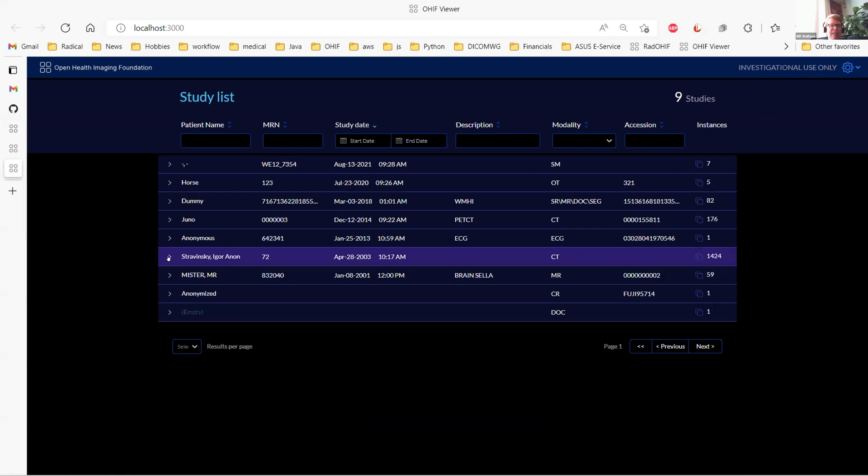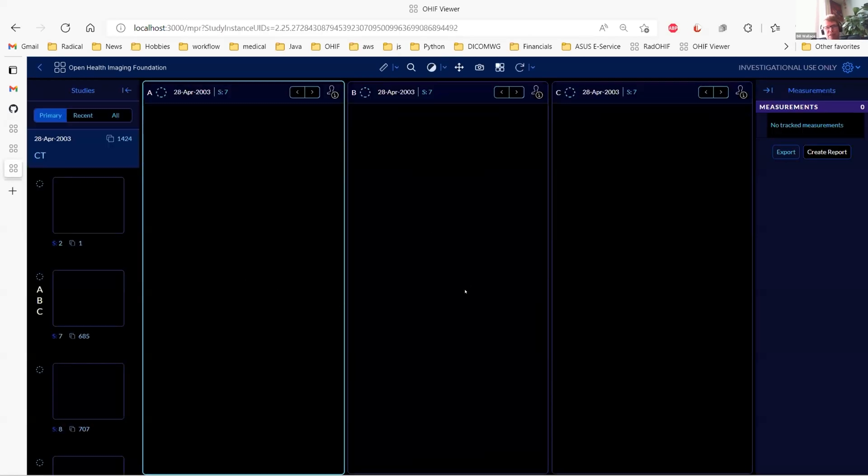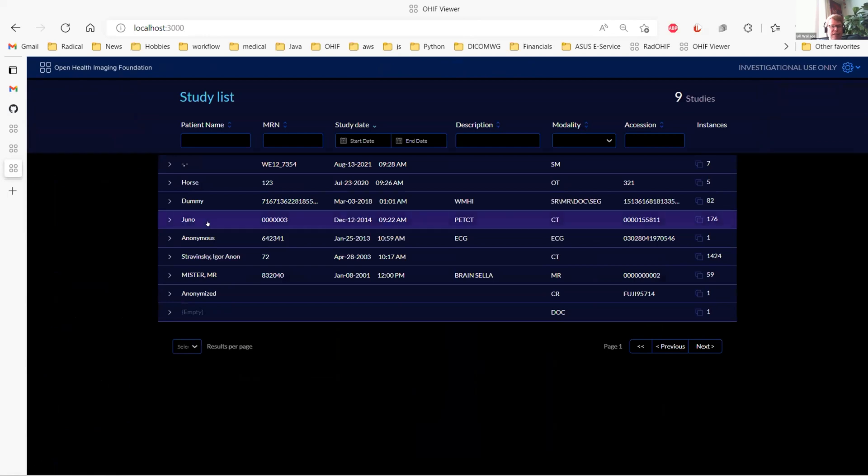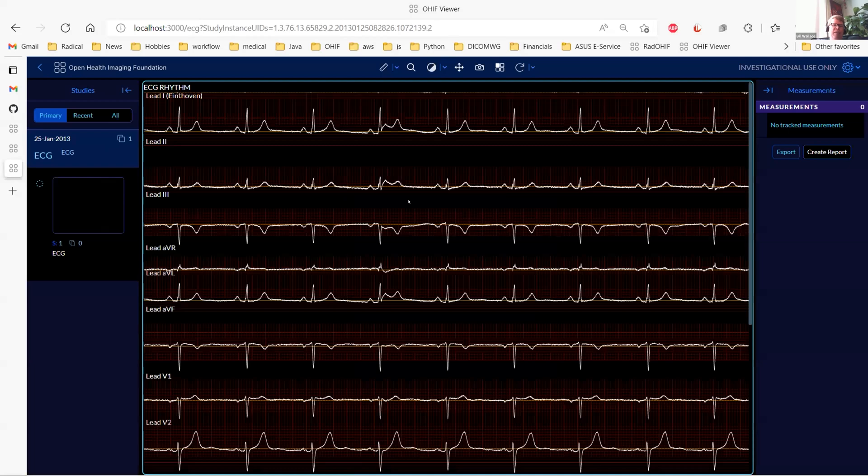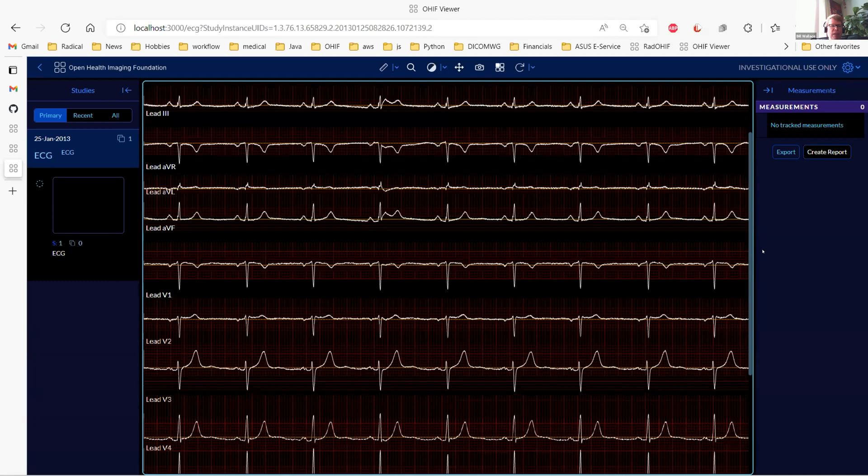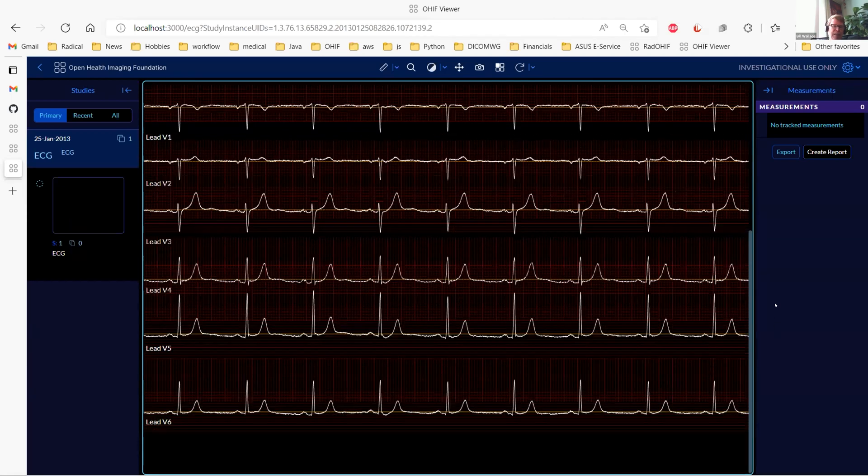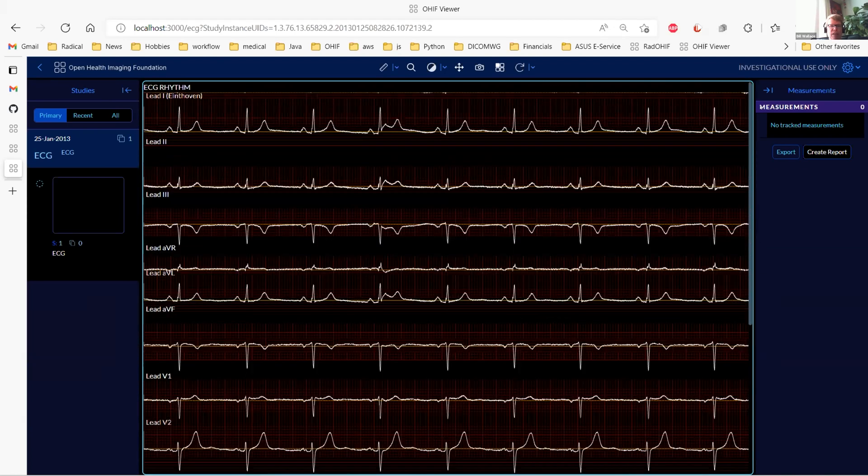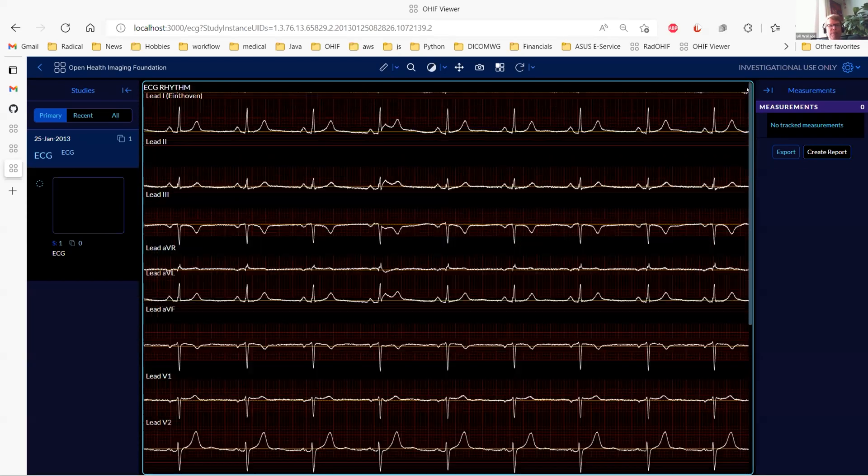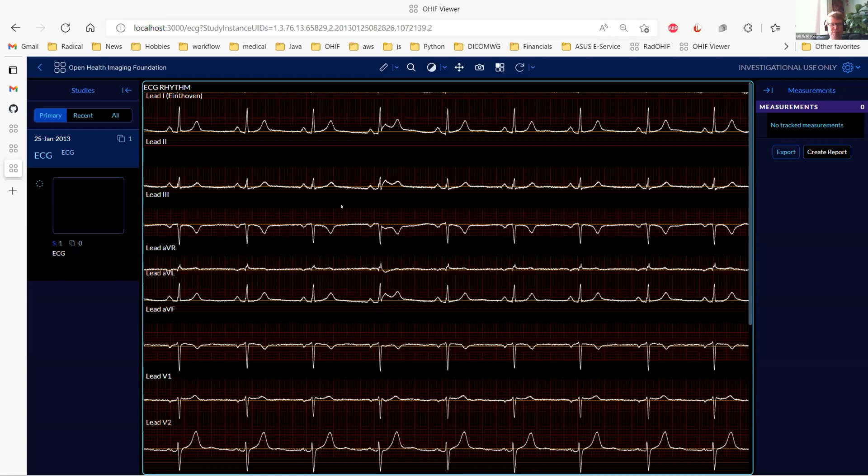Let me actually show the viewer. So as you can see, you get the basic viewing of ECGs here. Then in the same viewer, you can just add the ECGs now. There's a bit of work to do still on the formatting to make sure that all of the background lines are still in the right spot. But basically, you get a bunch of different trace views and you can scroll them and take a look at all of them. I'm hoping that this will be a basis for other people doing additional work in the future.